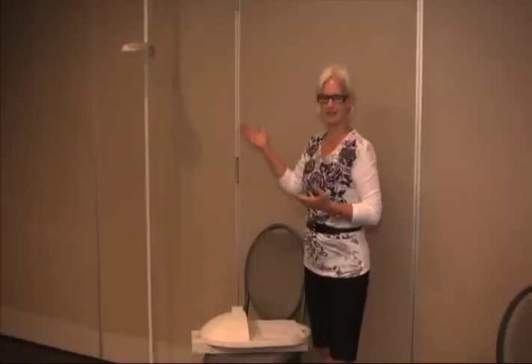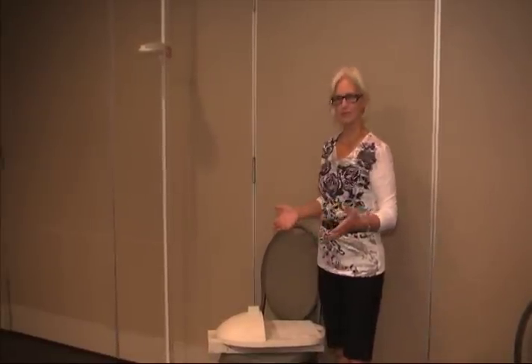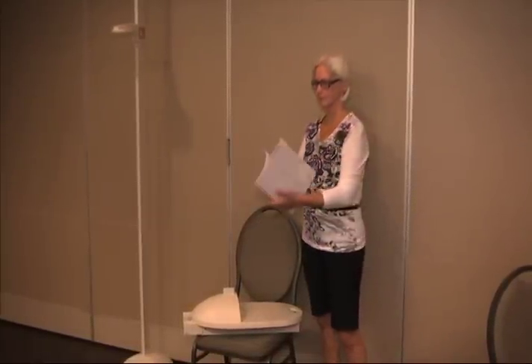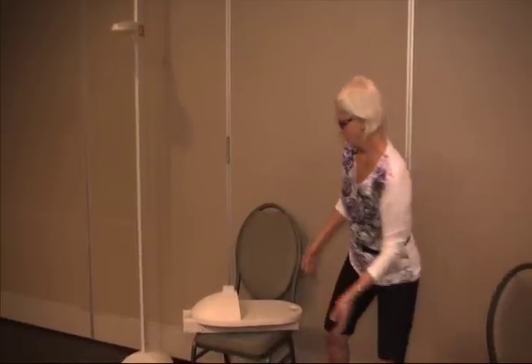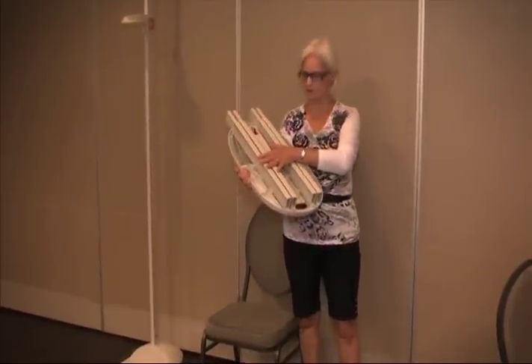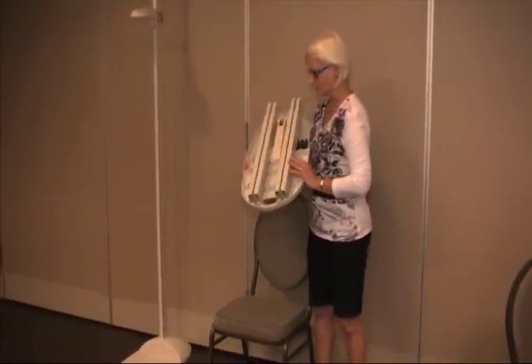What I'd like to show you this morning is how you're going to use a stadiometer, which is used for measuring height. This is a portable version. I have one assembled. When your package comes, they will come in variations of what I'm going to show you here. They do come with an instruction manual, but sometimes those can get set aside as we unwrap the package. When it is disassembled, this is what you will see. It all compacts nicely into the bottom, which is designed to hold the parts. I'm going to assemble a model of what is right here.